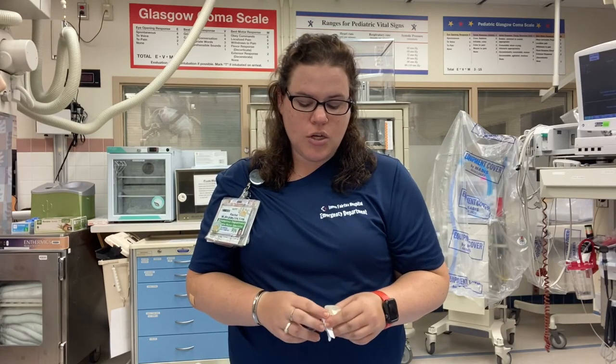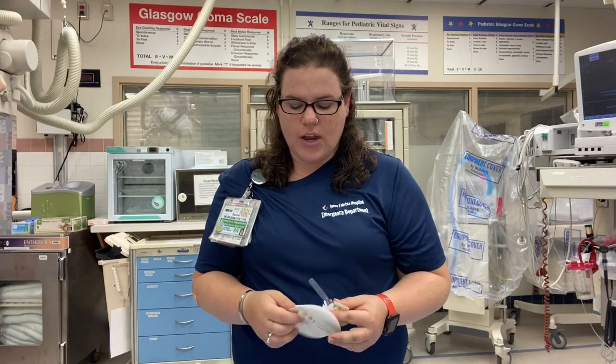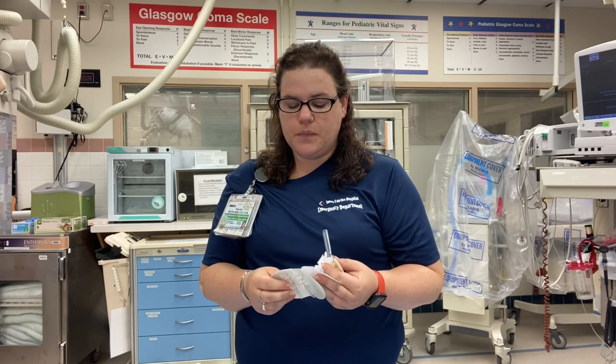For your male patients, just because you have an external cath in place doesn't mean you don't have to check their skin regularly or make sure they haven't had any incontinence issues before sending them upstairs or to discharge. These cannot go home with patients who are being discharged. If possible, put a date and time on the stat lock so the floor knows when you placed the external catheter. If you have any issues, just ask the unit supervisor, charge nurses, TNSs, or CARA.